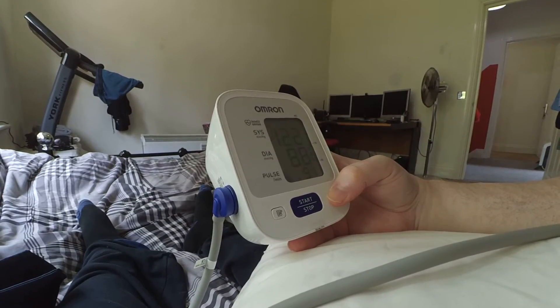And there we go — that's a fairly high result. Normally I would give it 10 minutes before doing this, and I'd take three results and, assuming there were no anomalous outliers, use the median value. But it does seem to work, so that's good. There you have it — some blood pressure testing in the home courtesy of the Omron M2.